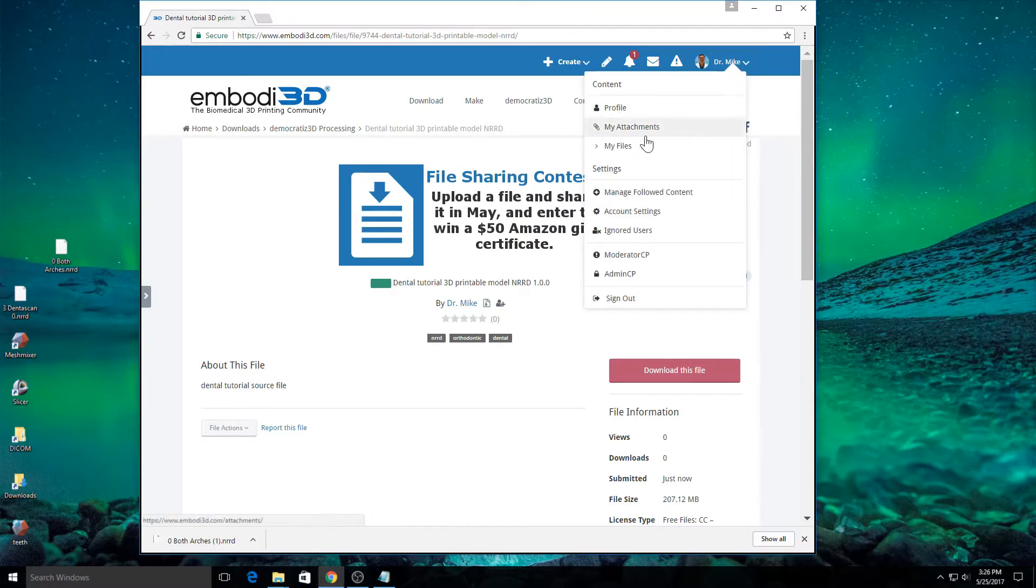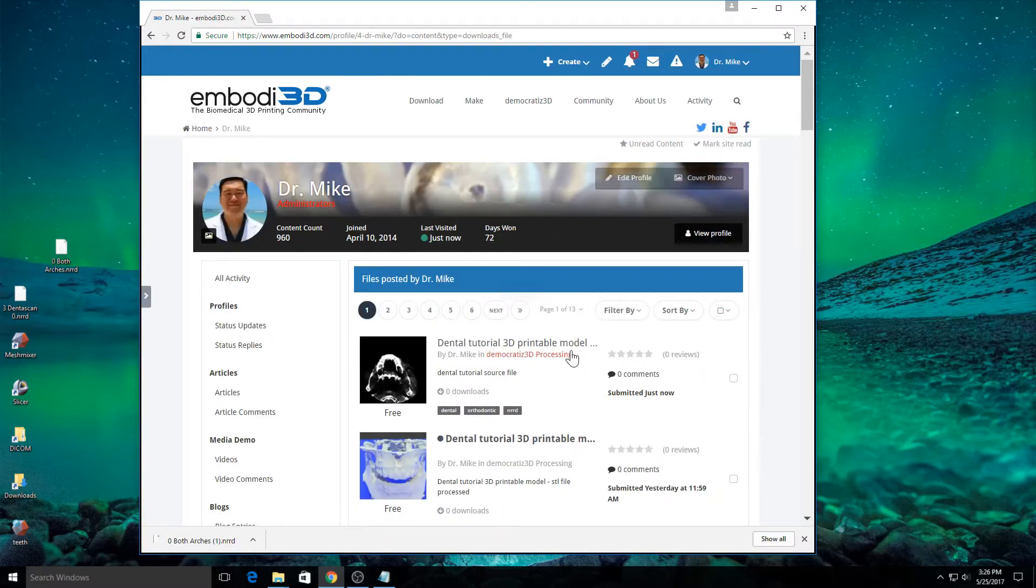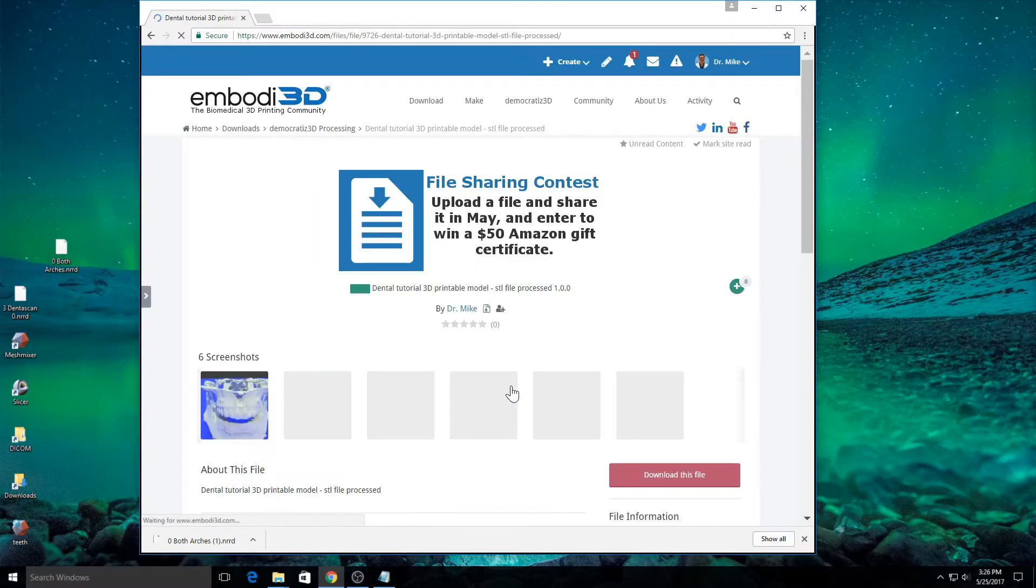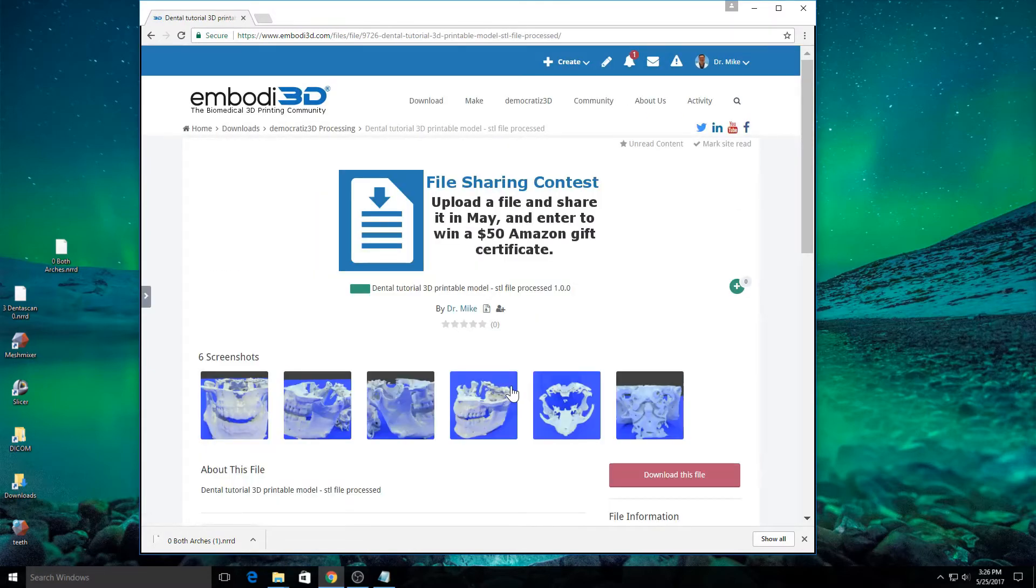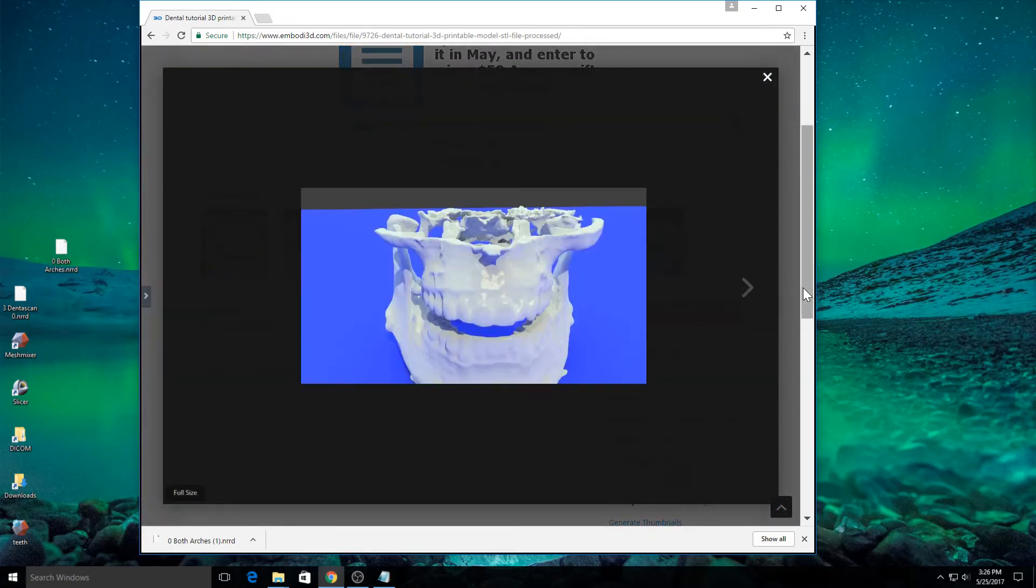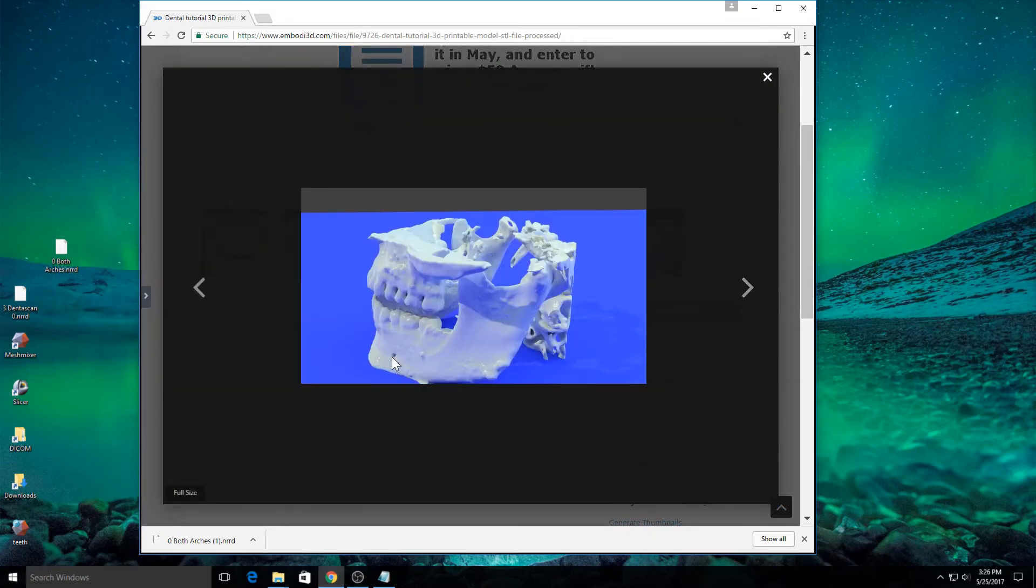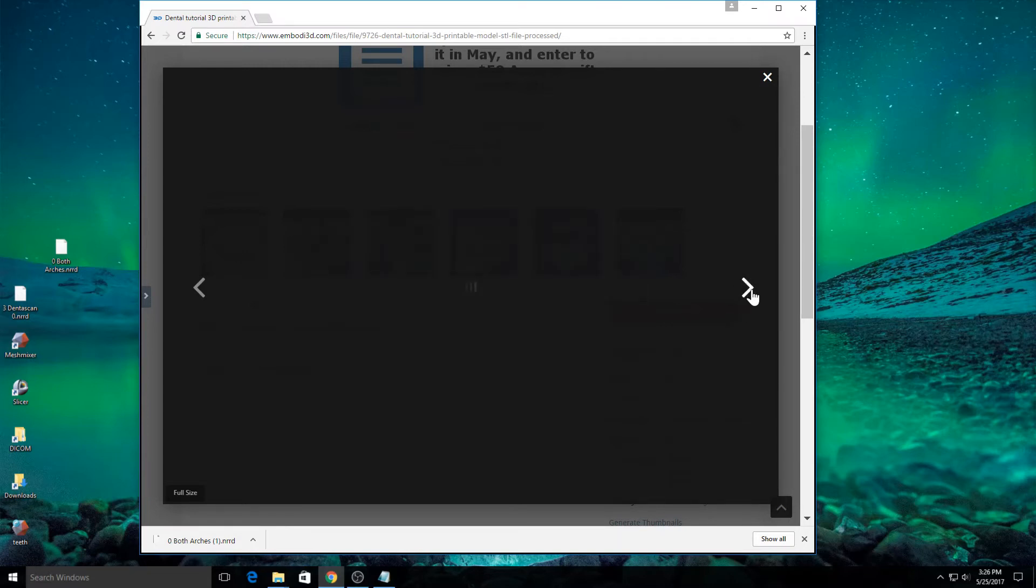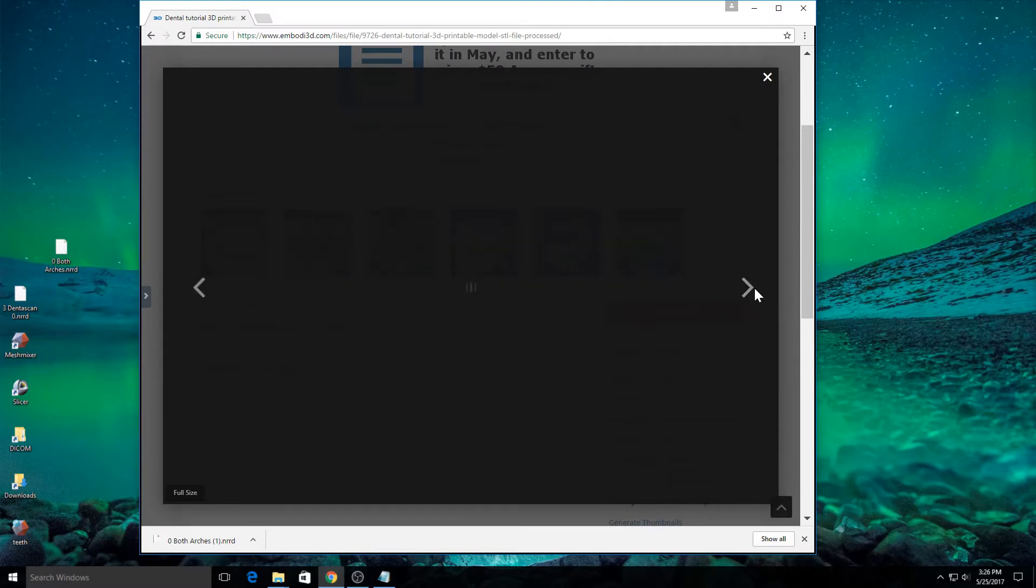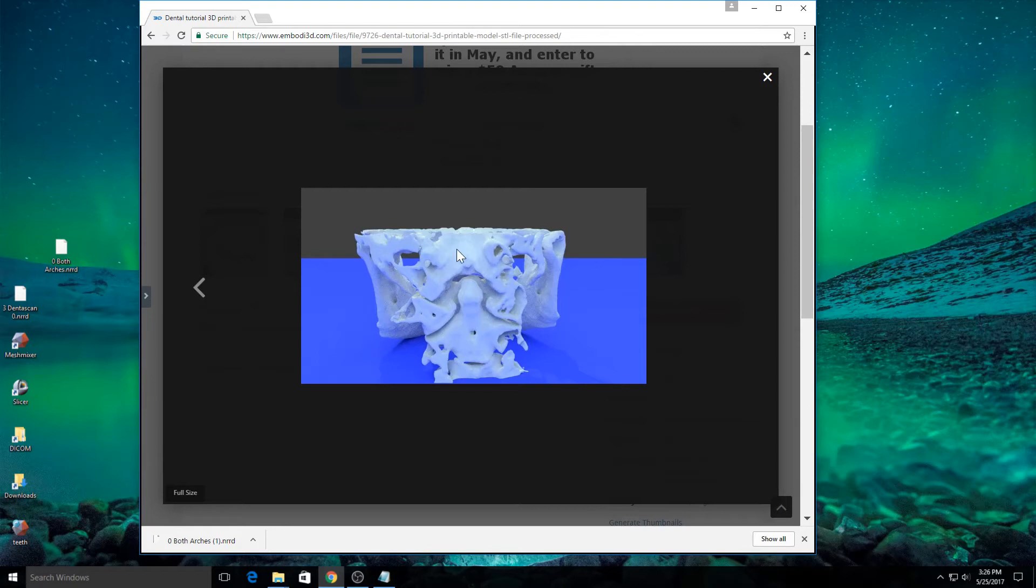Now, let's go ahead and see what this file is going to look like. I took the liberty of sending the same file for processing earlier. Normally in about 10 minutes, I would receive an email saying that the processing is done. But in this case, I did it ahead of time just so that you wouldn't have to wait for 10 minutes. And this is what the file will look like after it's been processed. You can see that it's pretty good. It has a lot of detail, you can see the foramina where the nerves come out and some arteries. We can even see part of the cervical spine. This is the dens and the C2, the second cervical vertebrae. This is C1. And this is the base of the skull that was captured in the scan and it's shown in this model.